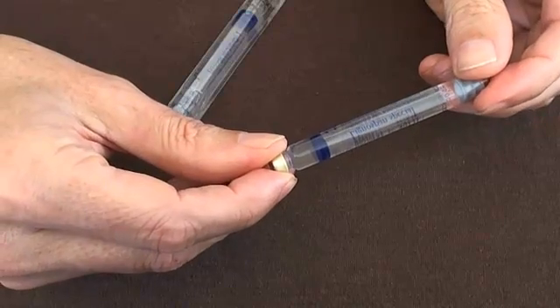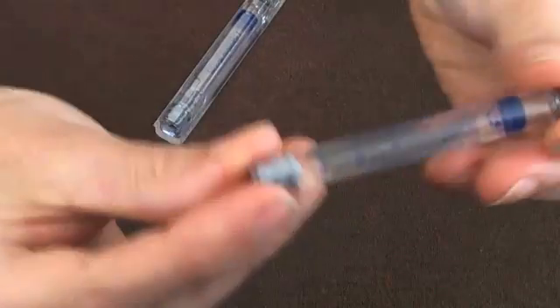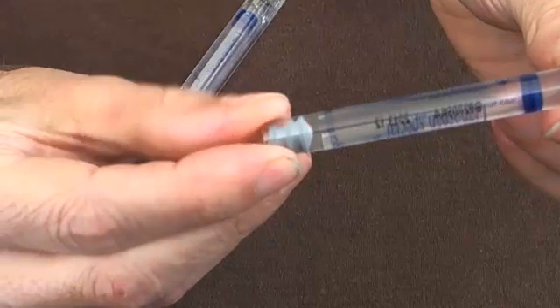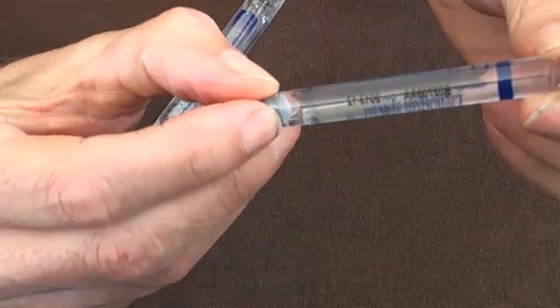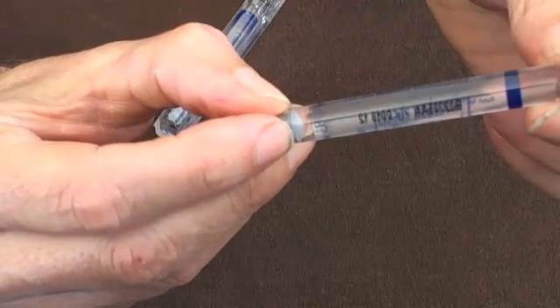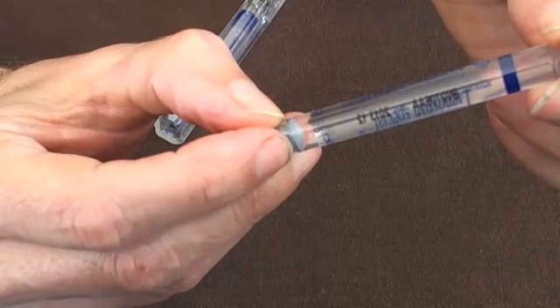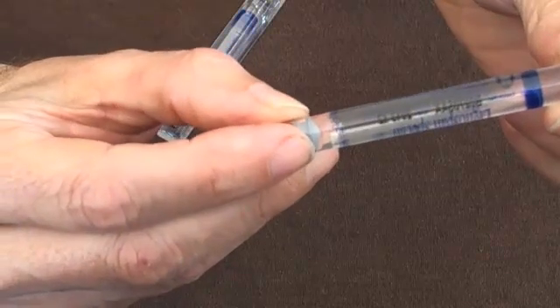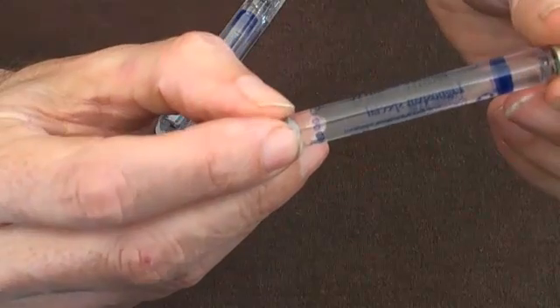The first thing that you should do when you get a carpule out is actually read the carpule. If I bring it up into the light here you may be able to see — on the back it will have a stamped use-by date. Local anaesthetic usually has a reasonably long use-by date. This one has a date of 2013 on it, and we're currently only in the first half of 2012 — so about a year and a half to two years.